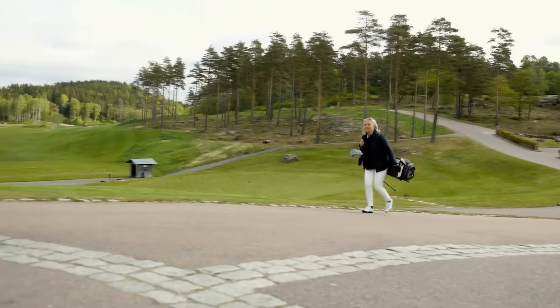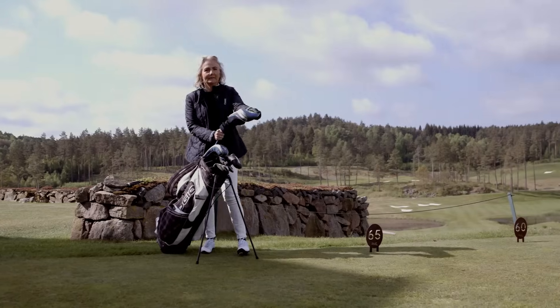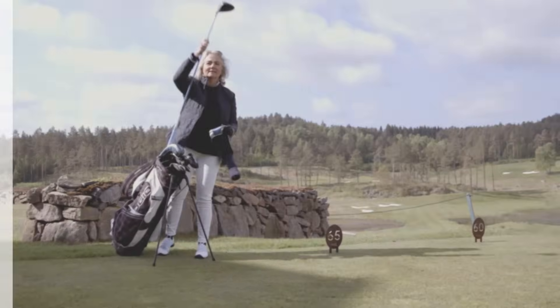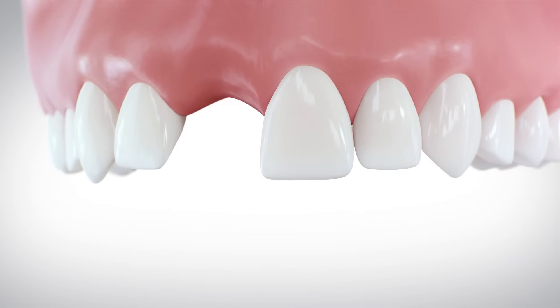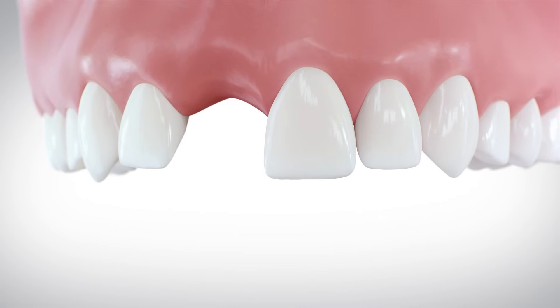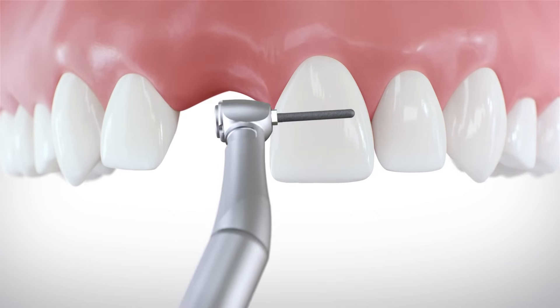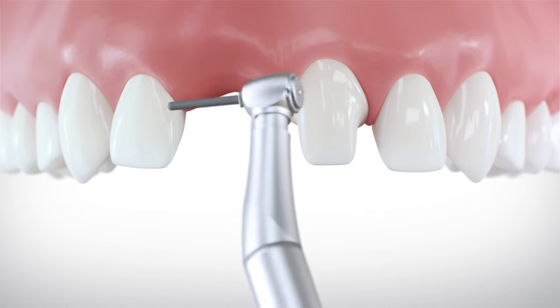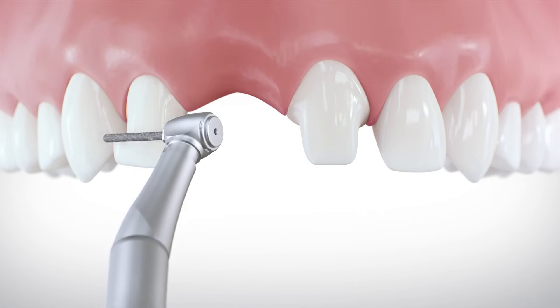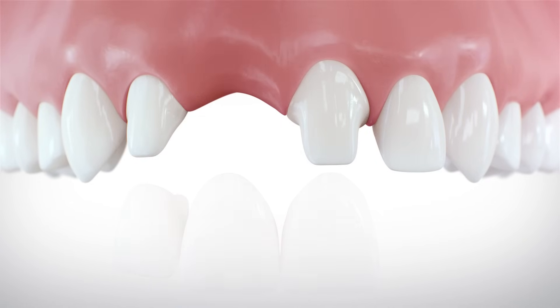Losing a tooth, no matter how, affects your whole life. There are two ways to replace a tooth. Traditional solutions, like a tooth-supported bridge, involve grinding down adjacent healthy teeth to support the bridge.